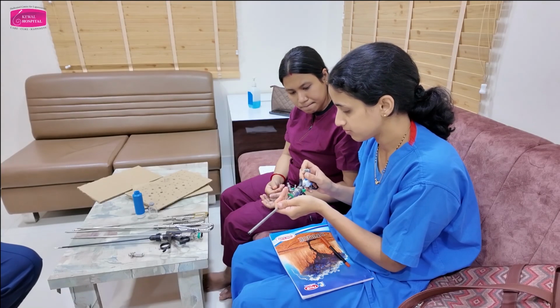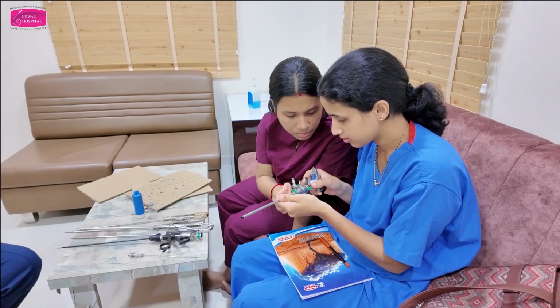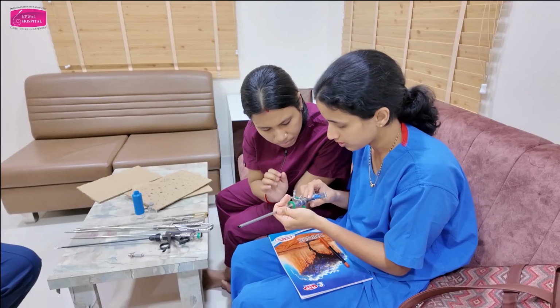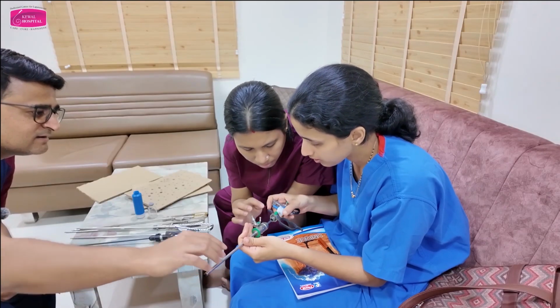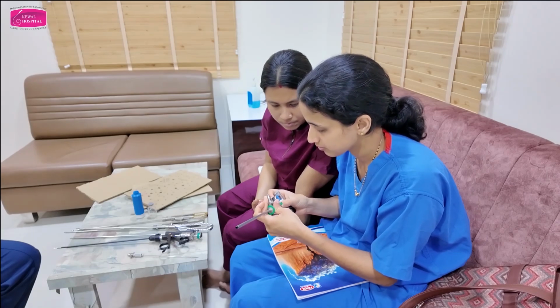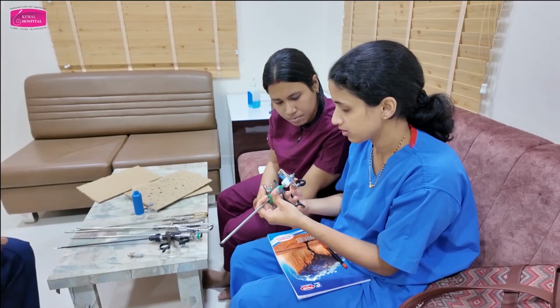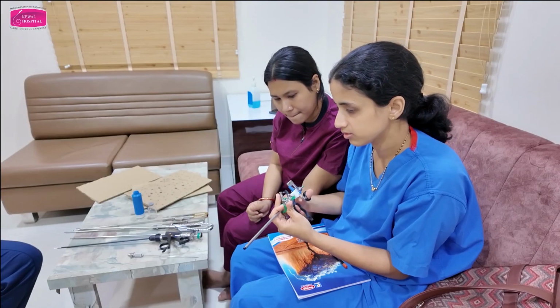Yeah, this is how. Notch. You have to align. There will be arrows, match arrows. No arrows? First ऐसे करो ना, देखो ना. Correct? Now press. No. Not like that. You have to press while engaging also. Correct? This is thumb operated. Okay.